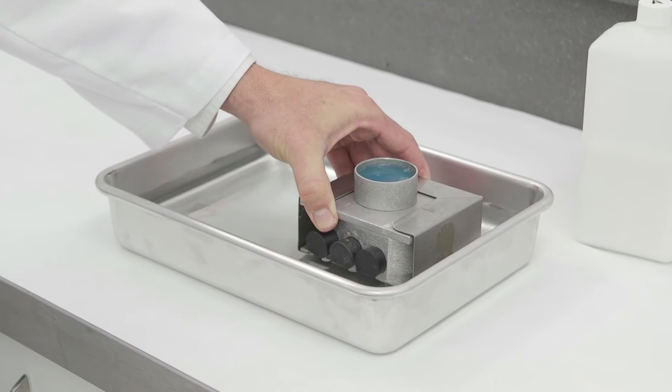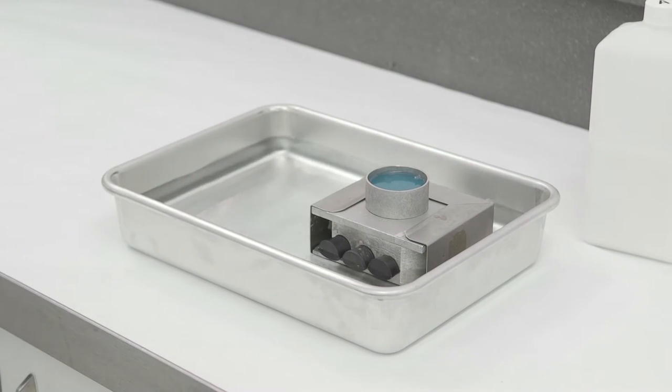To cool and solidify the PolyFlex, place flask in water bath for 40 minutes.